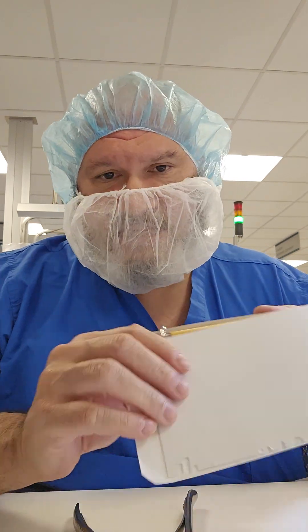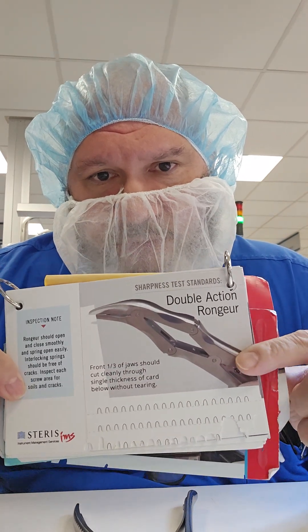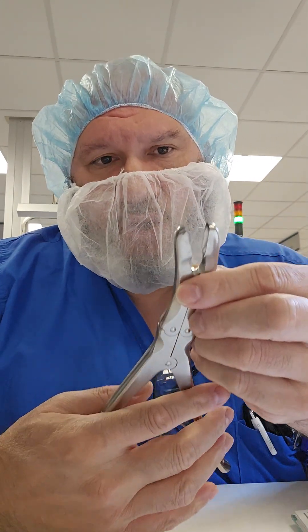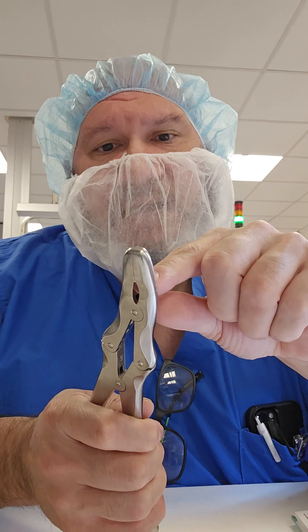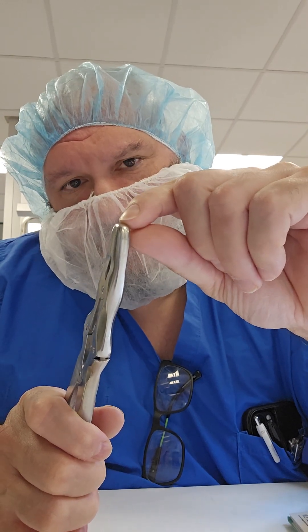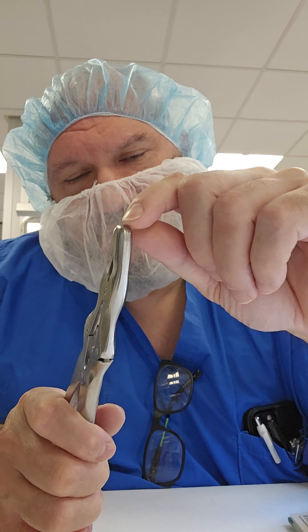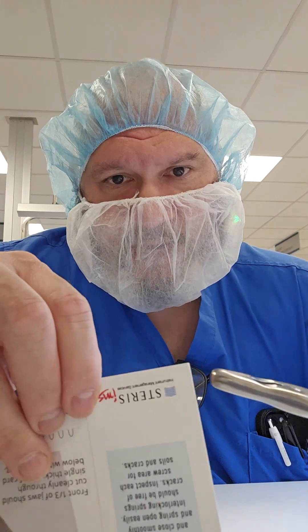If you have a testing booklet, it will tell you how to test each instrument. For the rongeur, you test on the card using only one-third of the jaw. The actual cutting portion of the jaw runs from the knuckle up to where it divots, so one-third of that is a very small portion — less than half of half. You can go anywhere on the card, not just the pre-printed outlines.